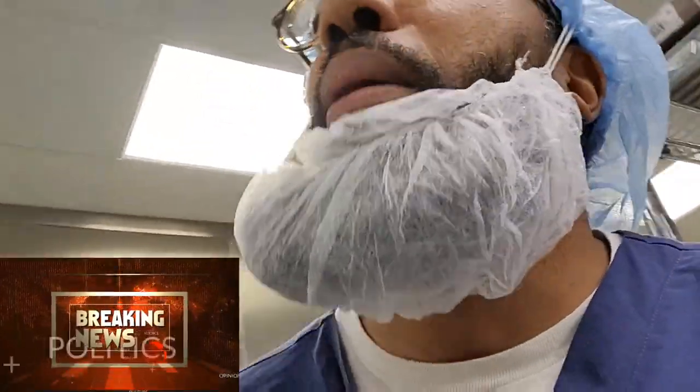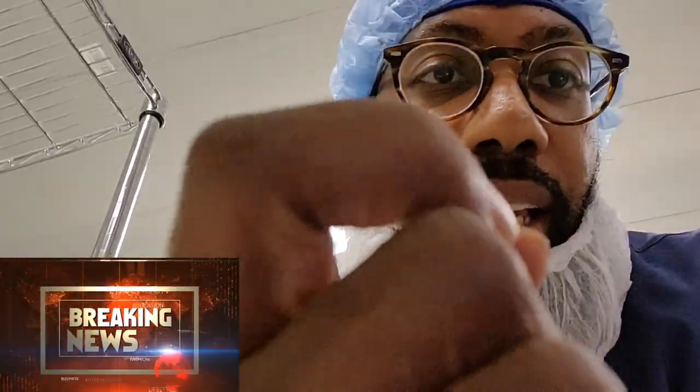Today's video topic is this: the common mistakes techs make. I'm going to show you some things from instruments that are common mistakes that we all make. Even I've made them — I've slipped up a couple of times before. But once you slip, now you can be aware that puddle is there. Let's go!